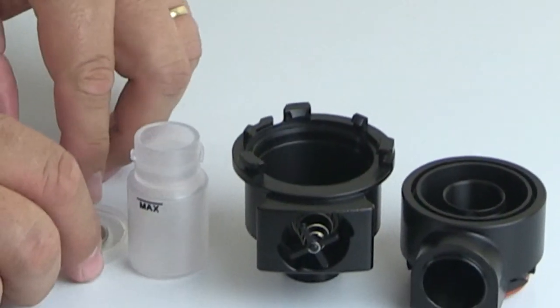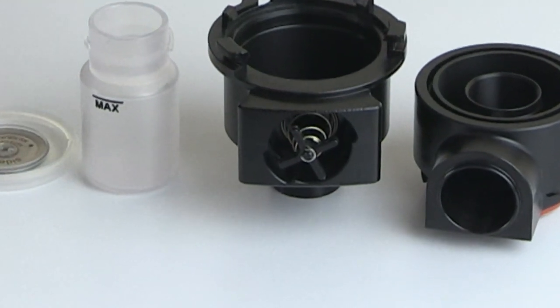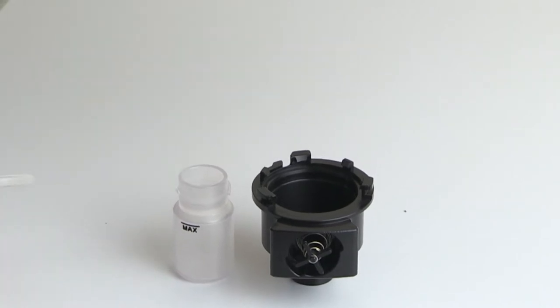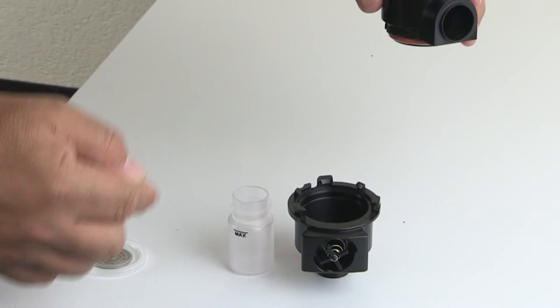These three pieces, four pieces, can then all be separately autoclaved. Once you've received them back from sterilization and you've managed to assert that they are clean and dry, we can then commence assembly of these pieces in exactly the opposite way.